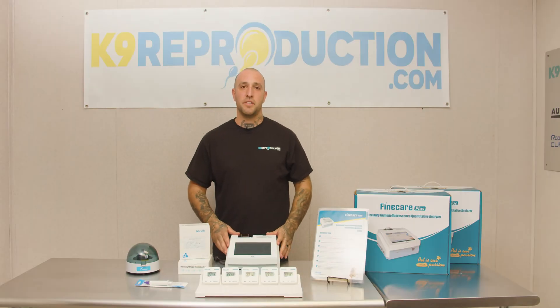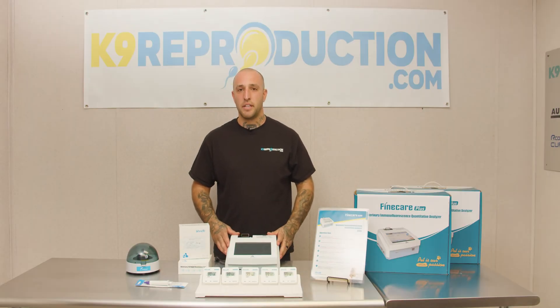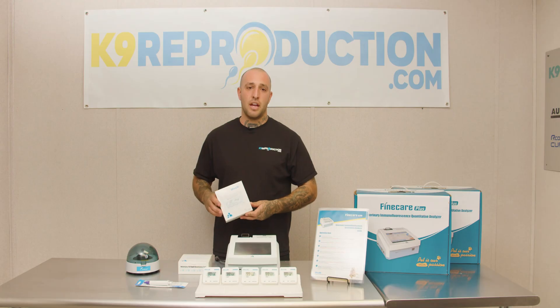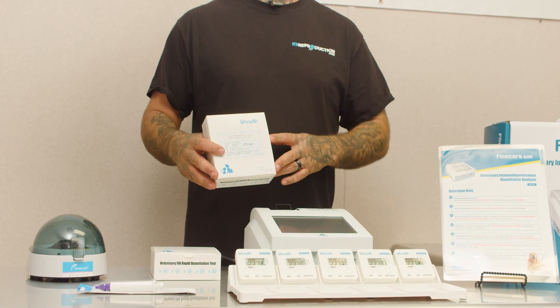What's the most important factor in any business? I think we all can agree that it's saving money and cutting costs. And that's where this bundle really comes into play. These tests only cost you $9, which is going to help you keep the progesterone money you're spending throughout the year in your bank account.